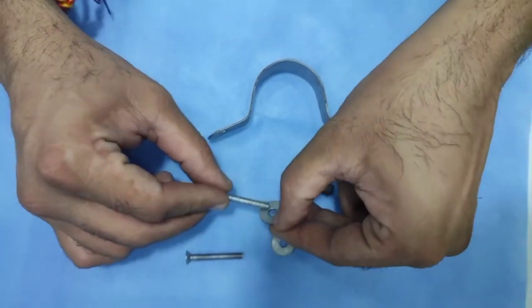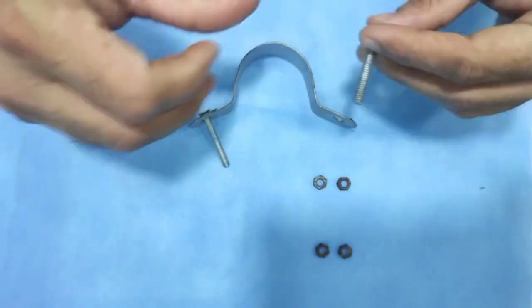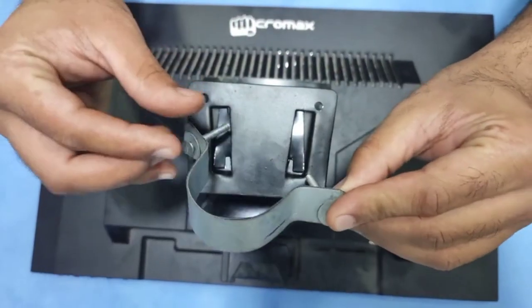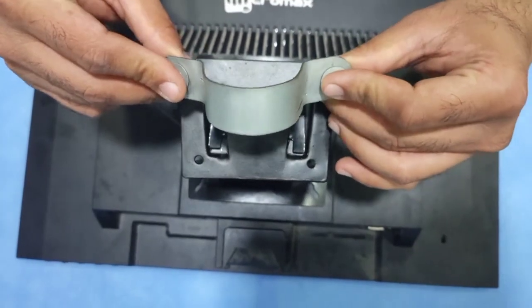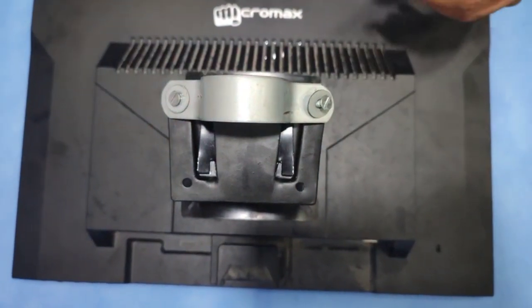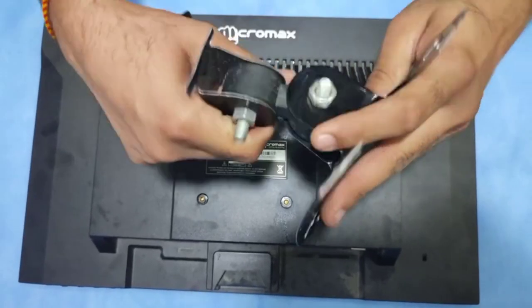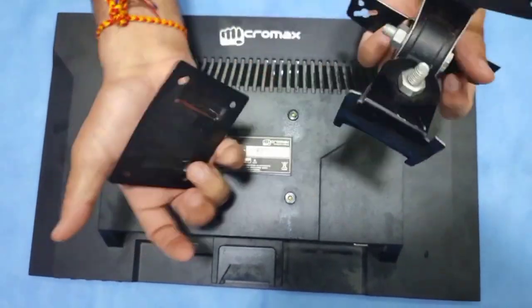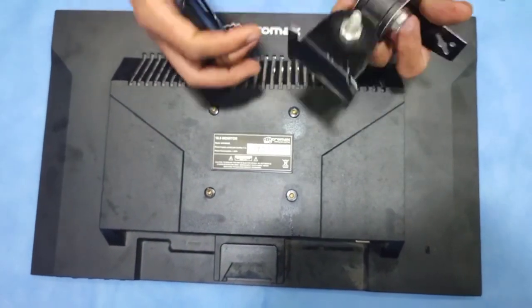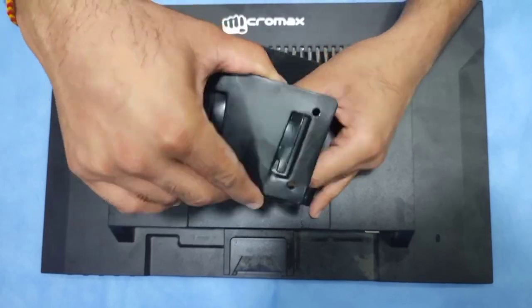This is how these screws are going to go inside your clamp. The reason for the angled bend is that the wall mount connection clip is smaller in size, so having an angle allows you to easily place your screw inside. This will not weaken your connection — it is not harmful in any way, so it is totally safe. The scale shown represents the pipe which will go through this half circle. The wall mount can be moved right, left, up, and down. This is the plate we connect our wall mount to — the wall mount connects to the LED screen, and this plate connects to our dental chair.